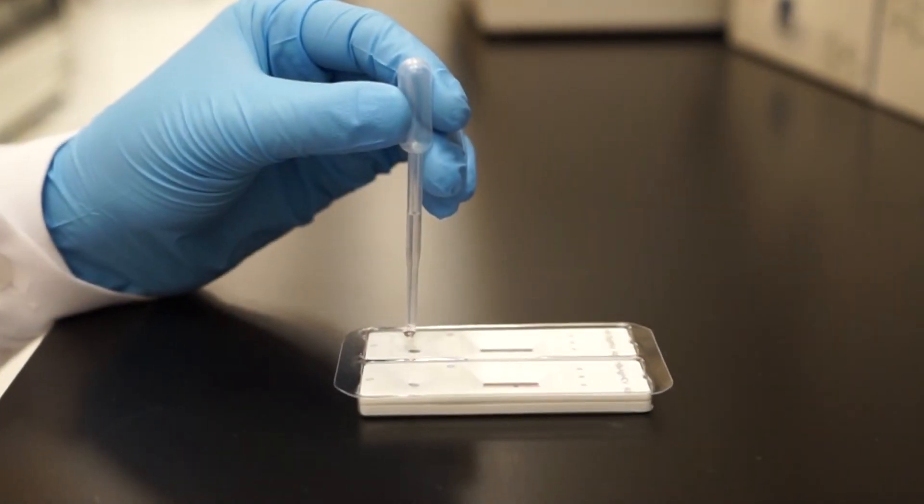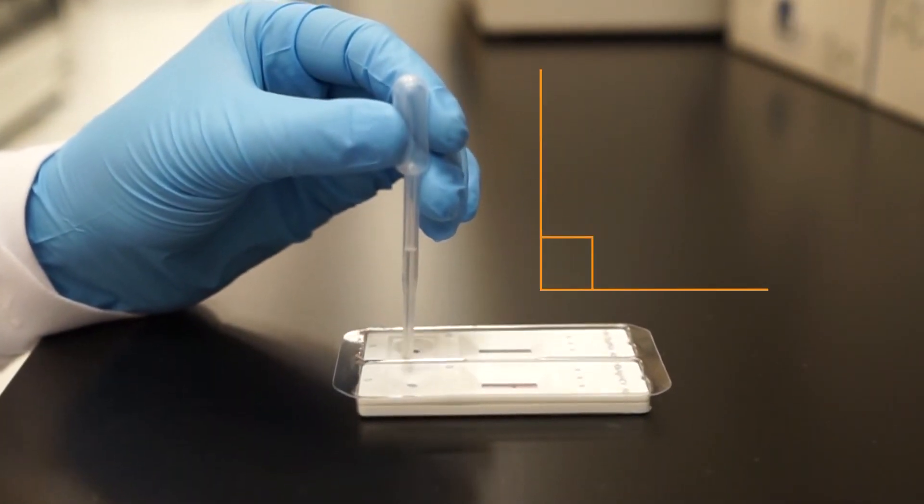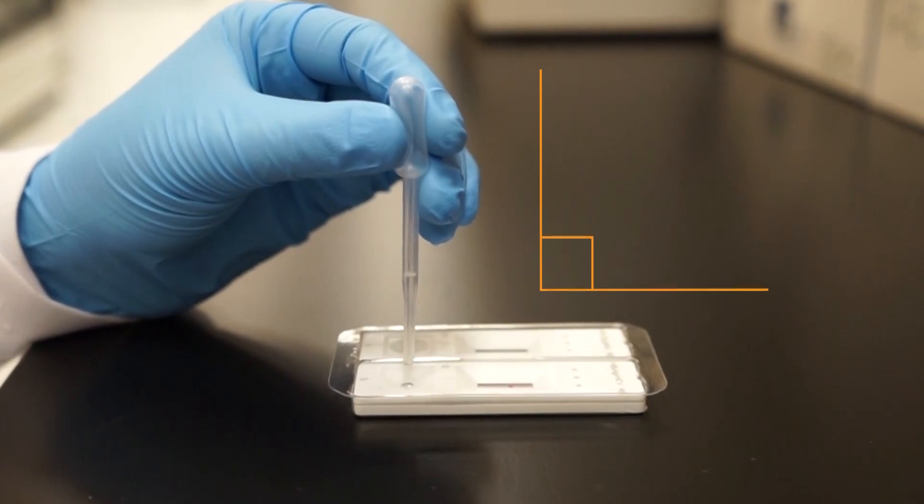Fill the plastic dropper with the specimen and dispense one drop into each sample well. Make sure there are no bubbles.